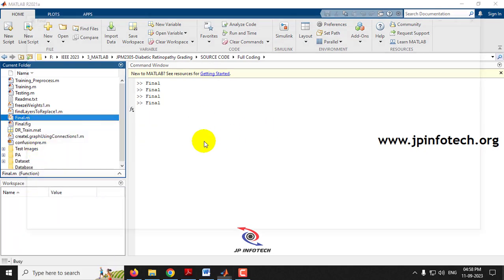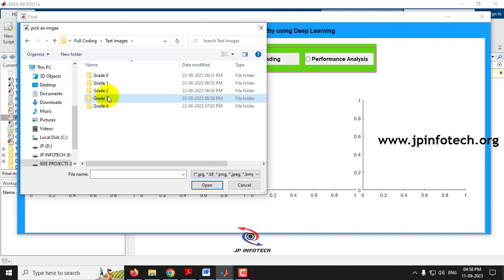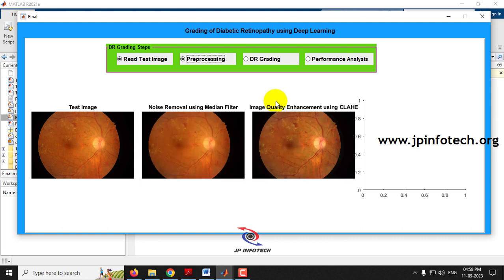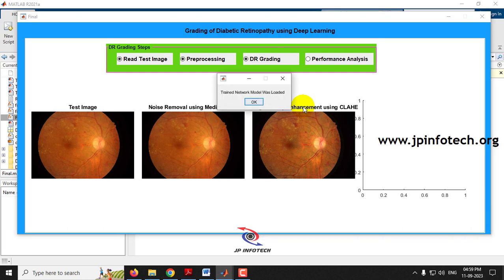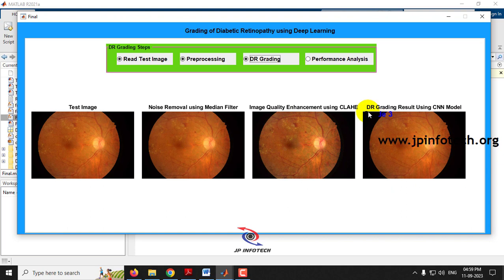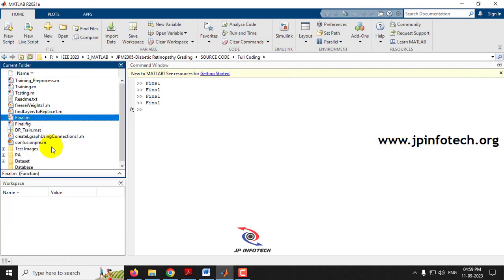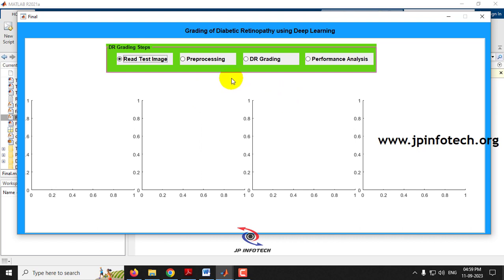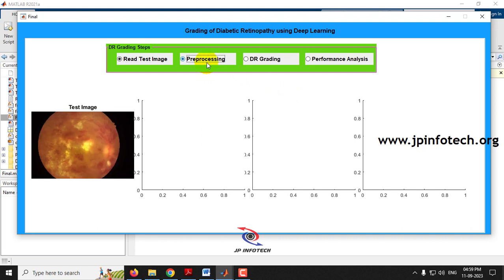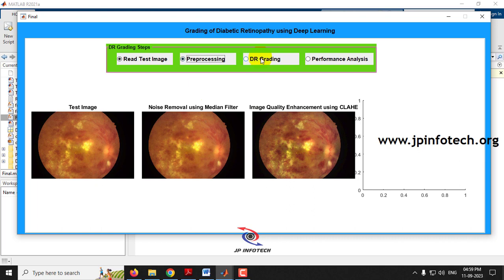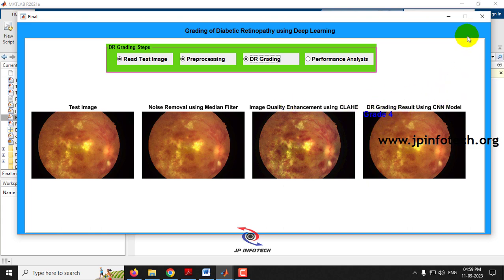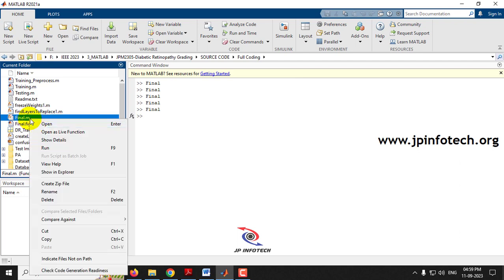Running again, reading the test image from Grade 3 — the test image is shown. Pre-processing is applied and the pre-processed image is displayed. Running the diabetic retinopathy grading step classifies the image as Grade 4. In this way you can check images from both the test and train folders.